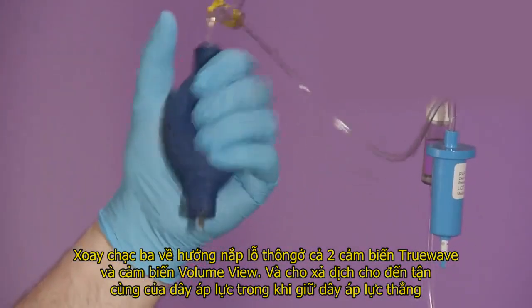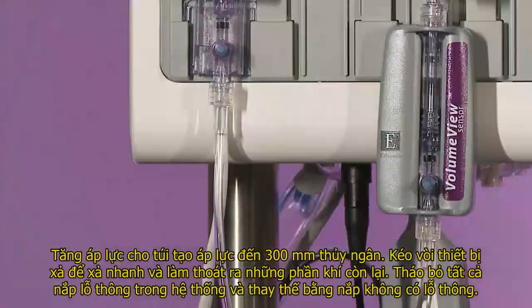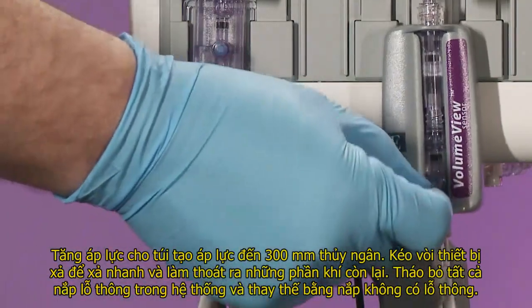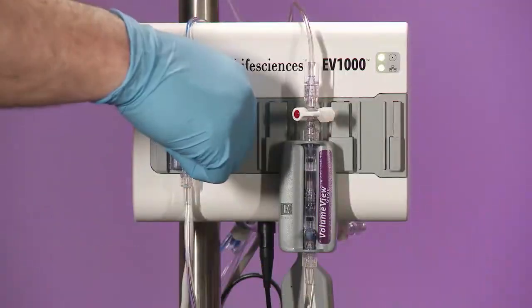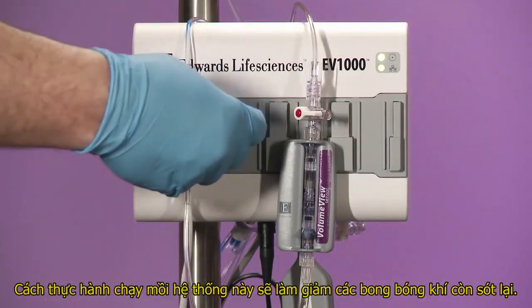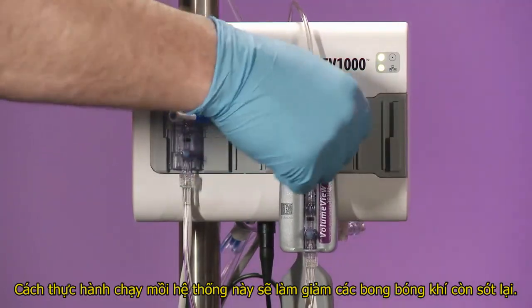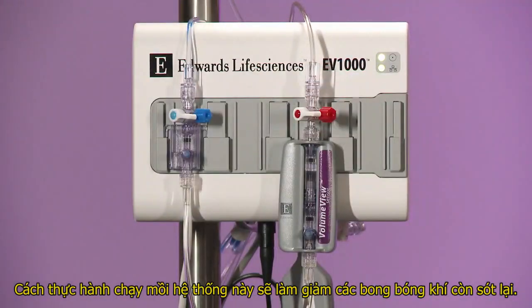Pressurize the infuser bag to 300 millimeters mercury. Pull the snap tab flush device for a fast flush and evacuate any residual air. Discard all vented caps in the system and replace with non-vented caps. The above best practice in priming the system will mitigate residual air bubbles.